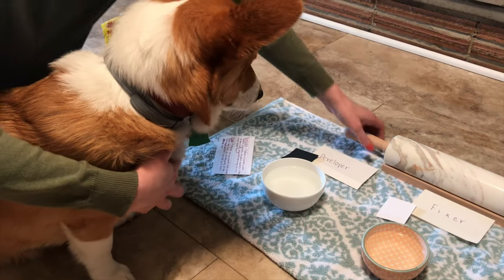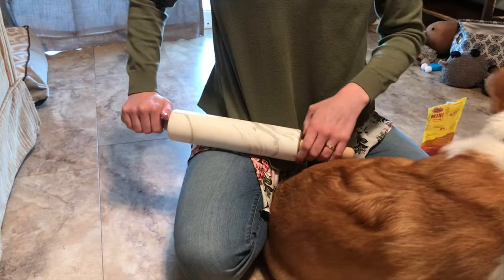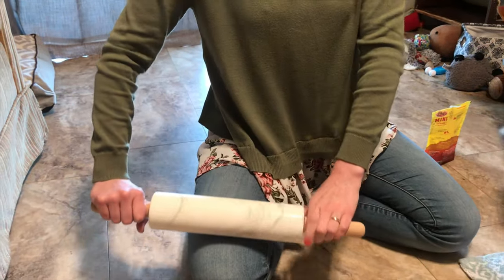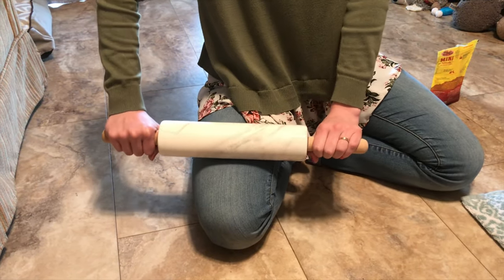The next step, we're going to use the roller. The roller is just used to move the film along, so we'll move the film from the feed slot into the next step.